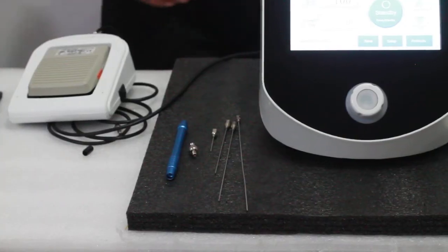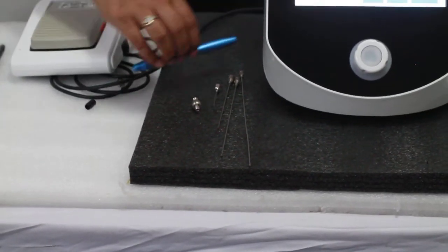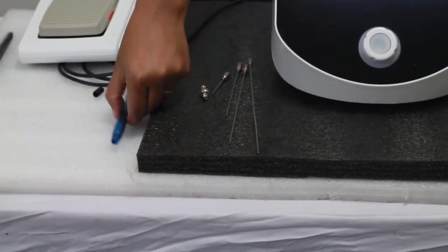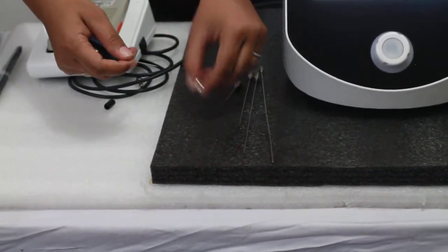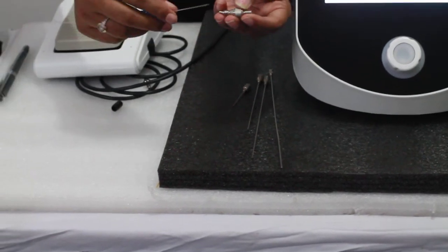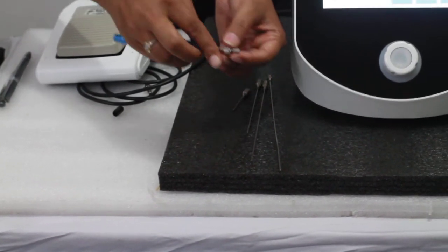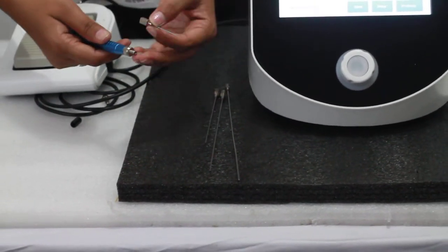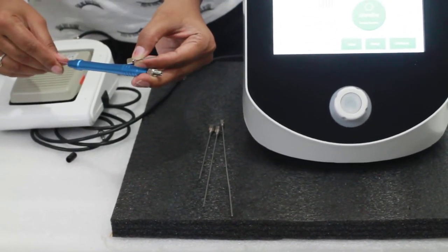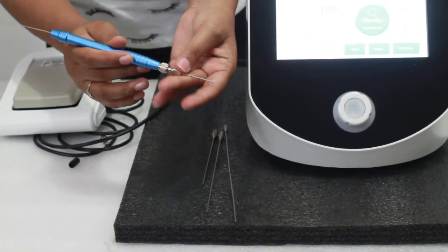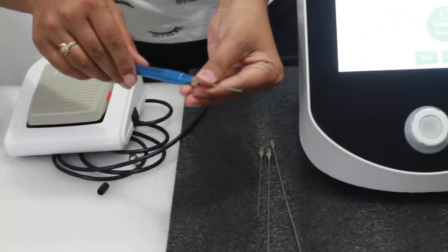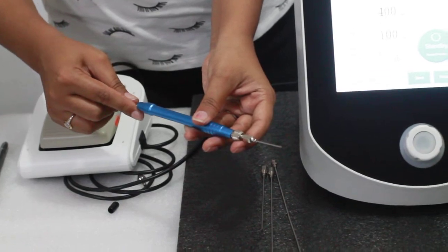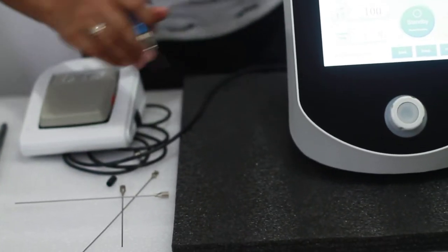Now you know that along with this handpiece, you will receive several tips for different purposes. This is the screw where the moving part will go down. Once it is tight, select any of the guiding cannula which is needed and fix it on the threads. Once you fix it on the threads, loose the screw and push the fiber. You see, now this is fixed.